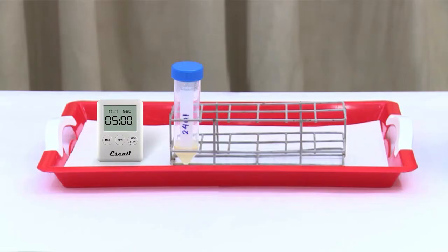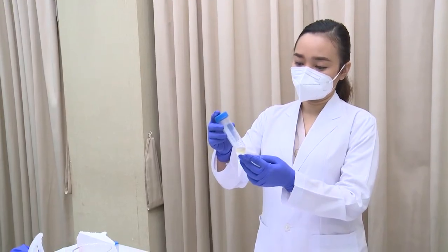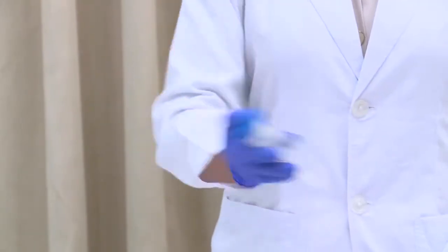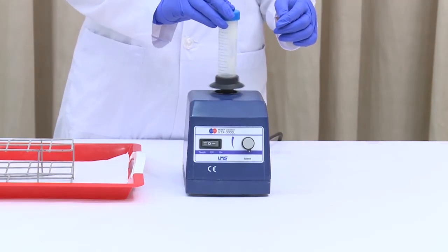After time is up, examine the specimen. It should be completely liquified with no visible clumps of sputum before being processed further. If there are still any clumps of sputum, shake again vigorously and wait further 5 to 10 minutes.